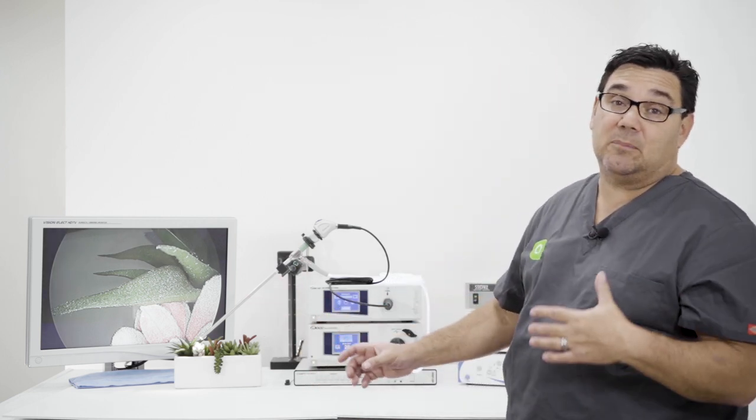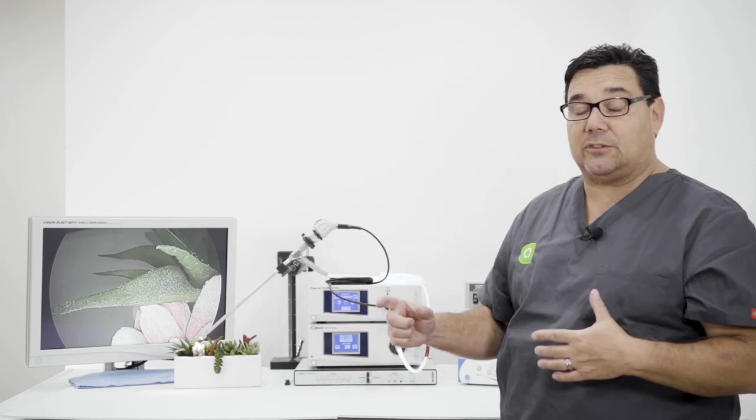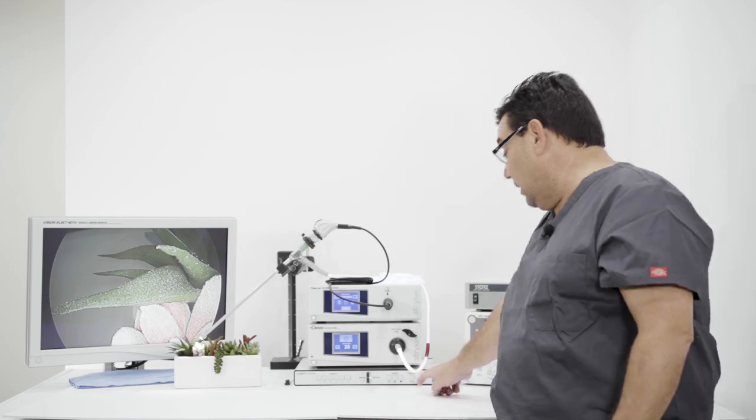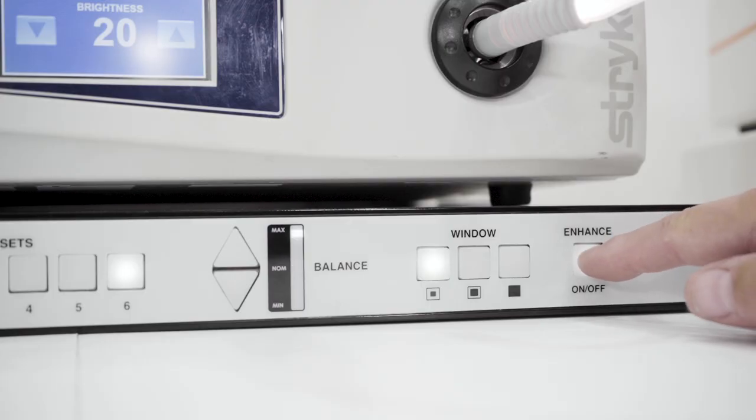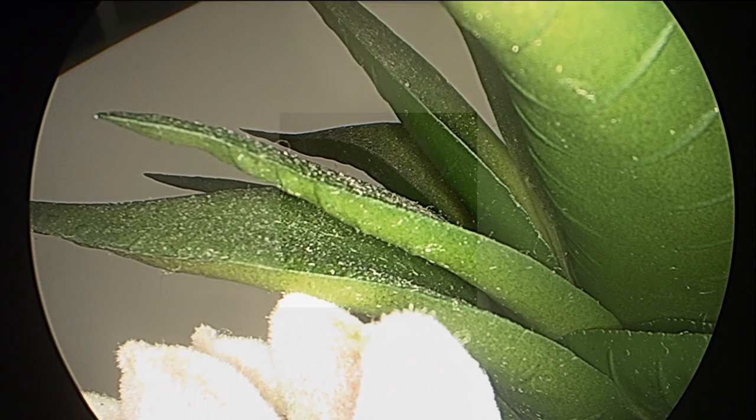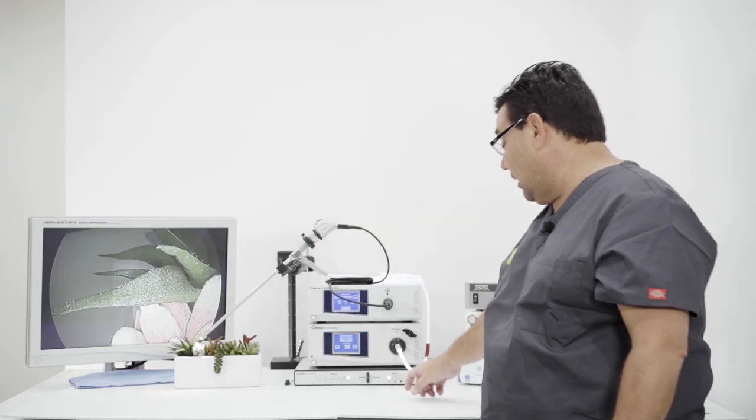Right now the system is off, but it is all hooked up. If you wanted to turn the system on, basically what you would do is come right here, hit the enhancement, you would then get a preset six, and it would give you the box right there. This box shows you.